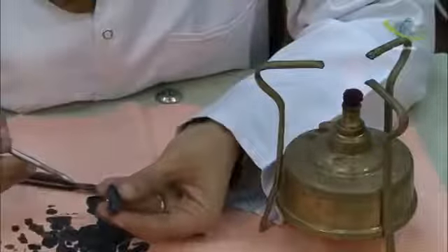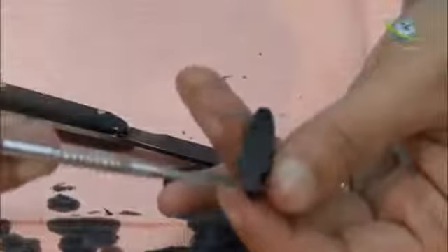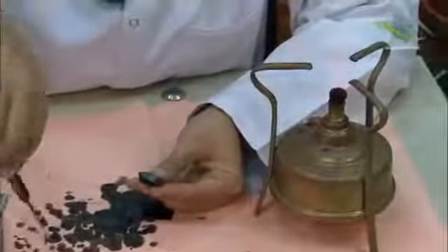We can see now the mesial aspect. The buccal half is straight, the lingual half is inclined lingually. The other aspect is still straight. Then we will start making the inclination on the other aspect.